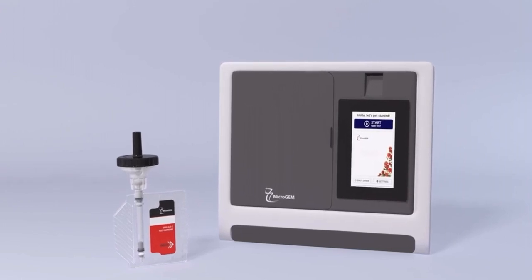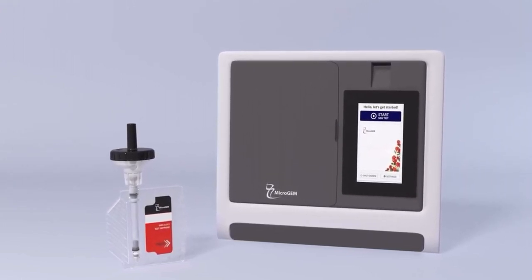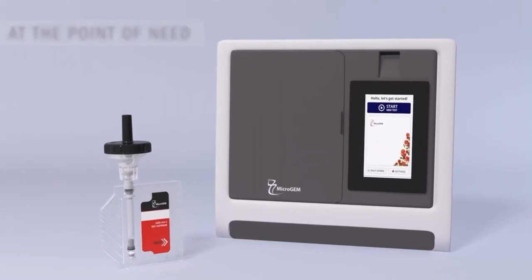It is an ideal solution to help people resume normal activities if they test negative or quickly isolate and get care if they test positive.